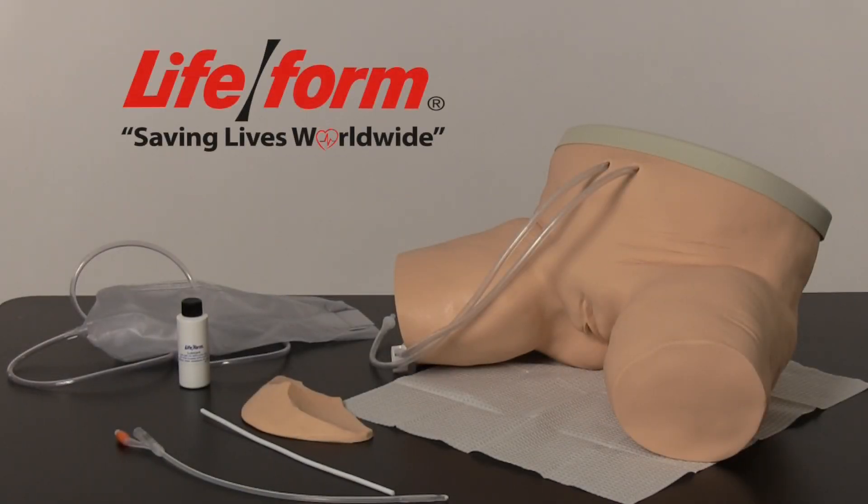The Life/form Female Catheterization Simulator is designed to duplicate the human condition as close as plastics technology allows. This video will assist users in the function, care, and maintenance of the simulator.